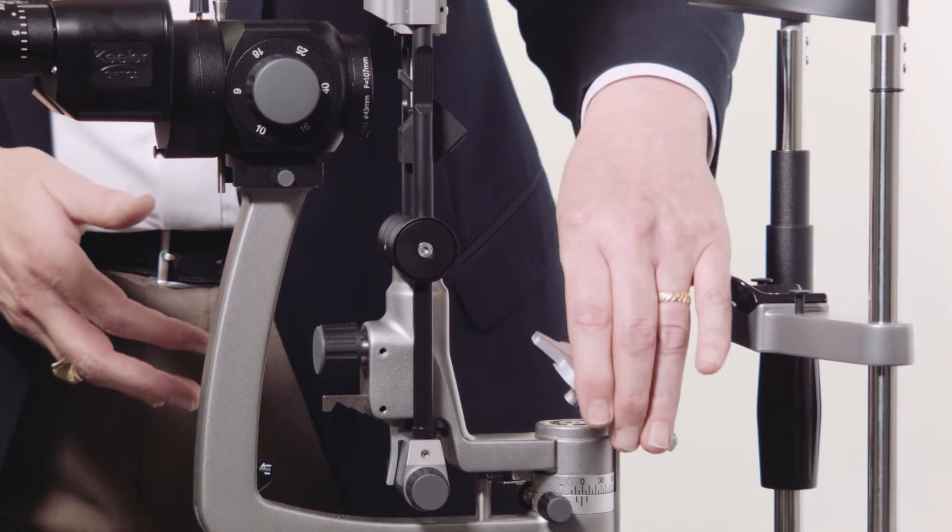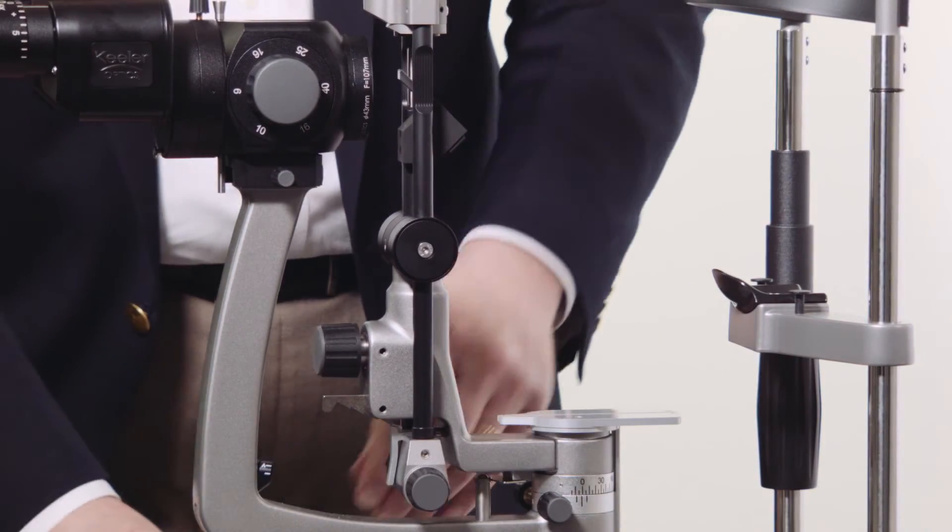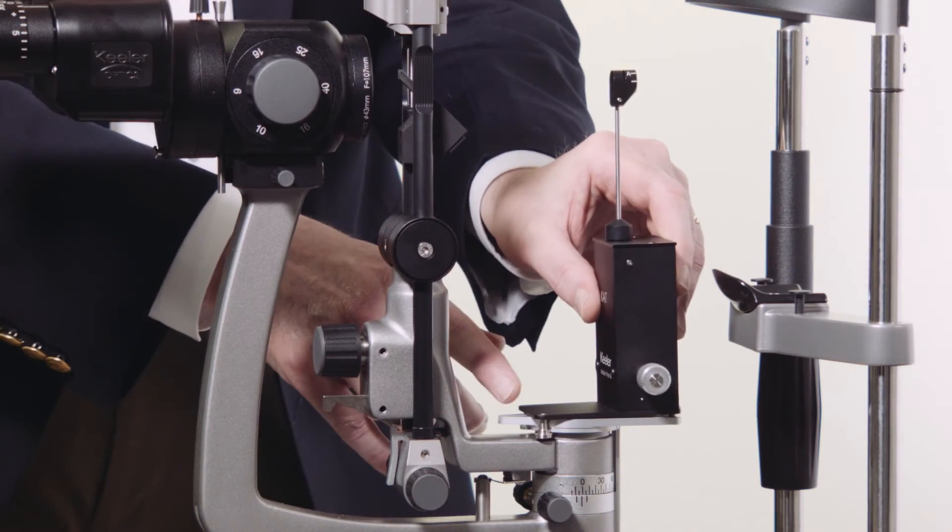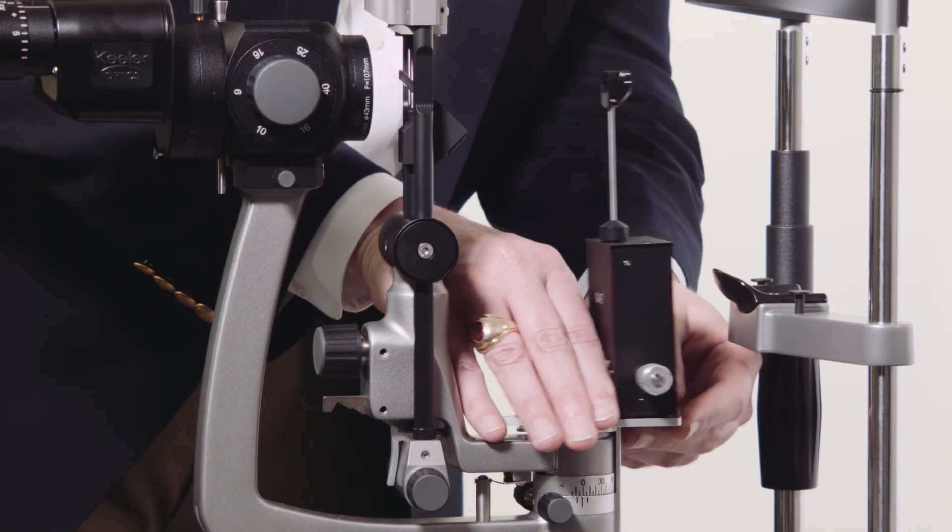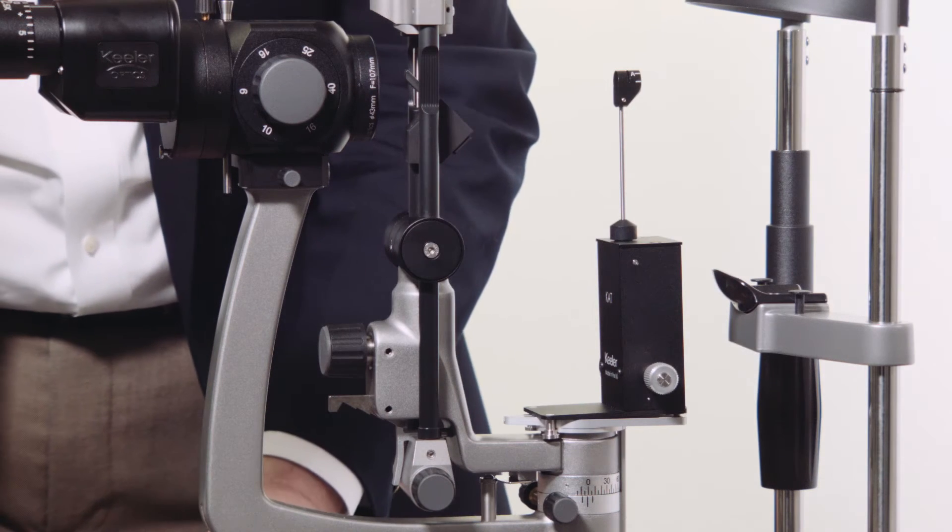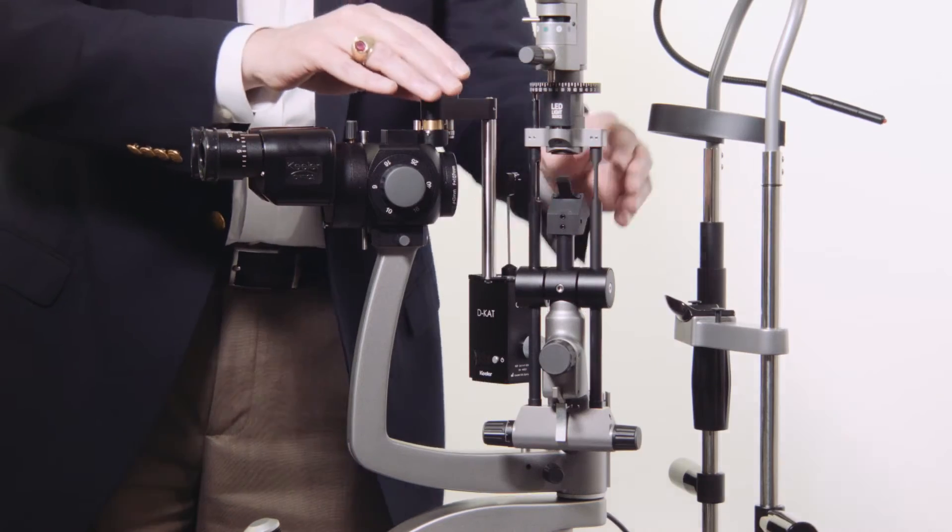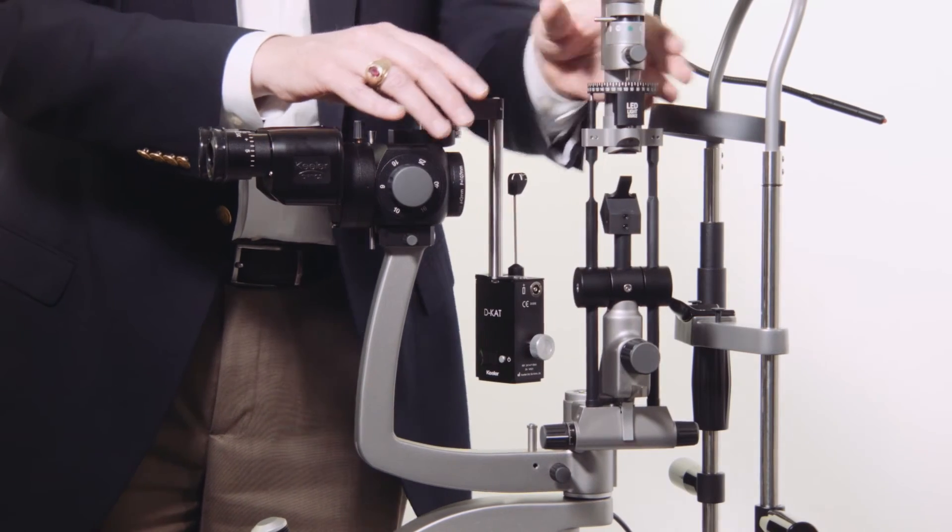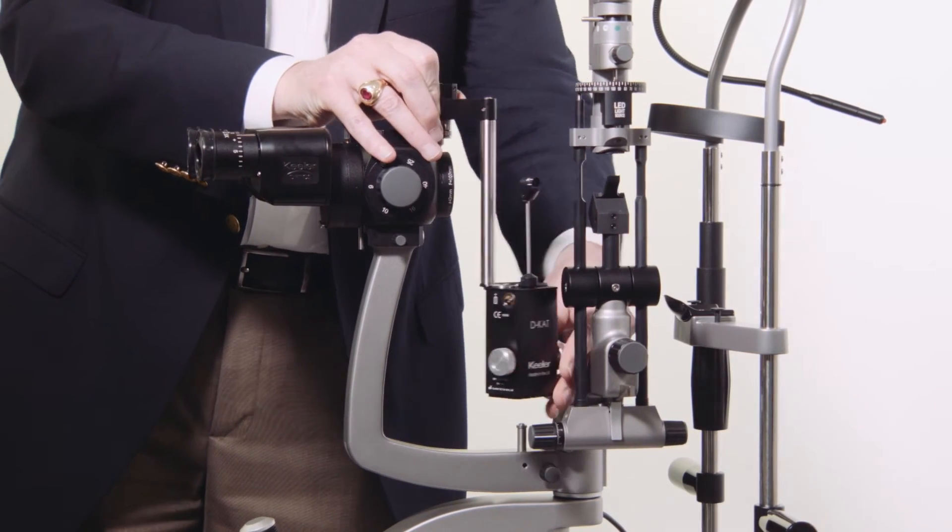To install the R-type K-AT tonometer, mount the plate onto the microscope body using the securing screw. Mount the tonometer forward in front of the microscope for examination. When not in use, the R-type tonometers can be swung around and secured to the side of the microscope.